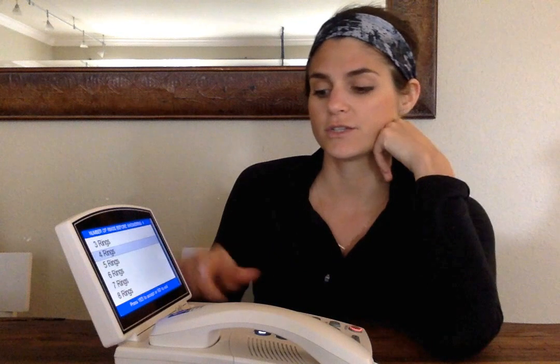So if you want to go down to answering machine settings, you can hit yes, and you can change how many rings until the answering machine picks up. Some people like 4, other people like to not have to rush to a phone. I definitely don't recommend anybody running to phones. You could always answer on your wireless handsets and then transfer to this phone if you feel too rushed. So just choose whatever feels best for you and go ahead and hit yes.